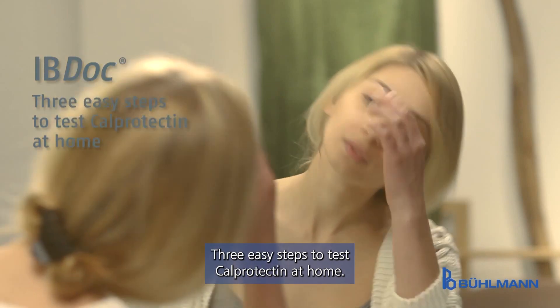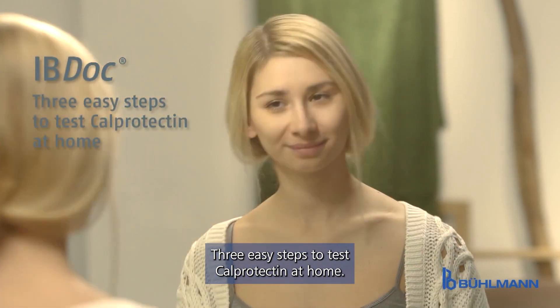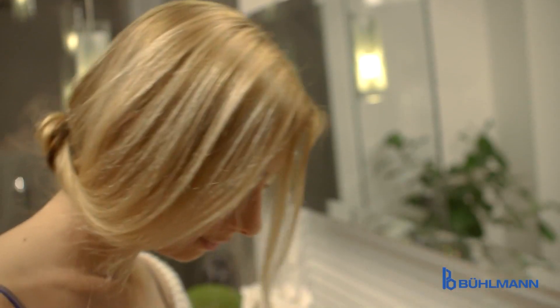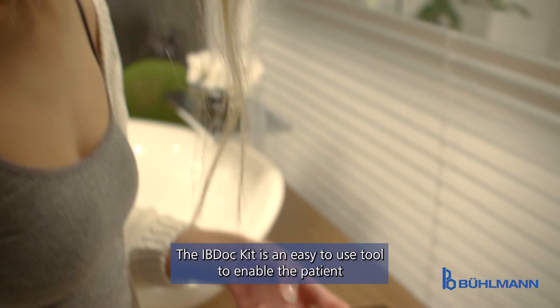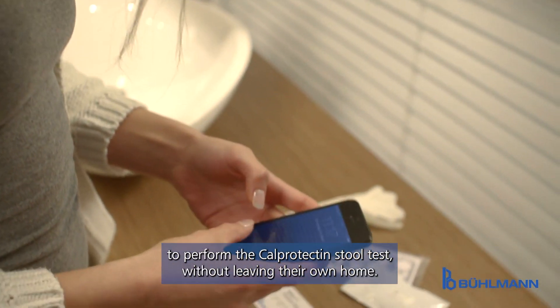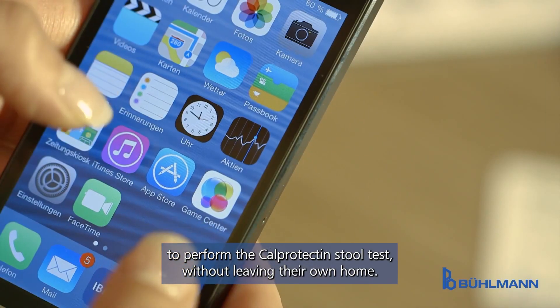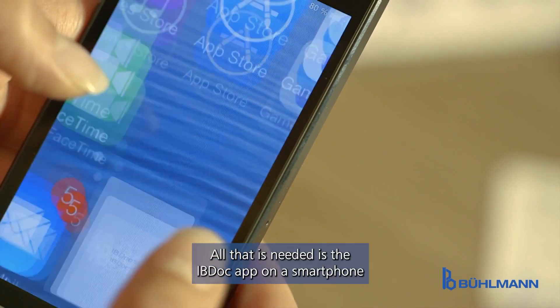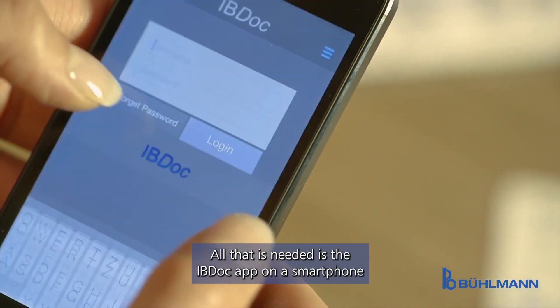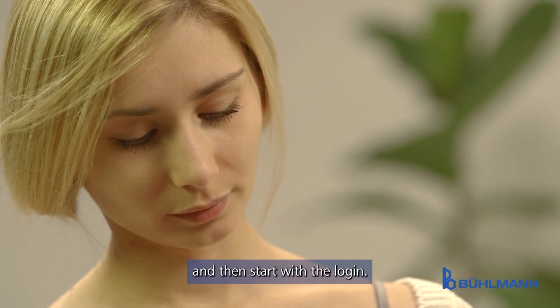IBDoc: three easy steps to test calprotectin at home. The IBDoc kit is an easy to use tool to enable the patient to perform the calprotectin stool test without leaving their own home. All that is needed is the IBDoc app on a smartphone, and then start with the login.